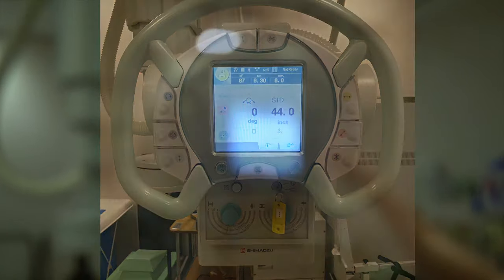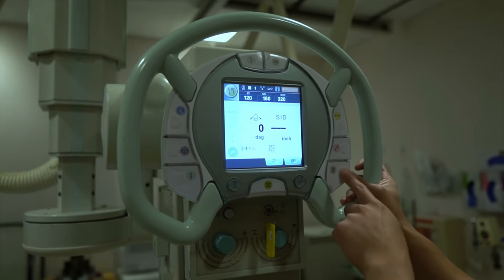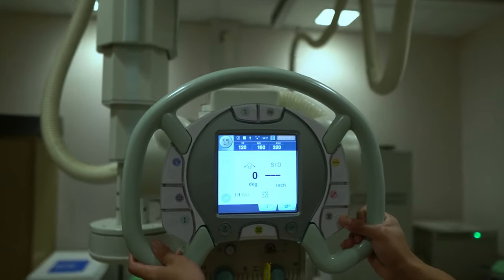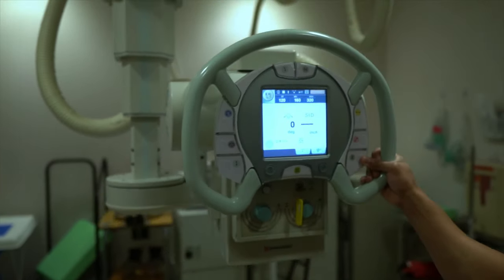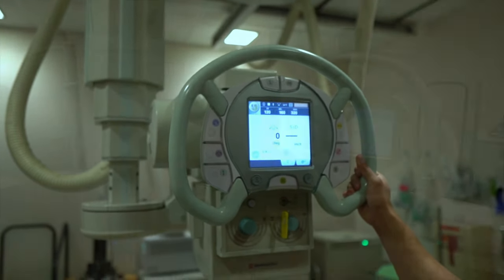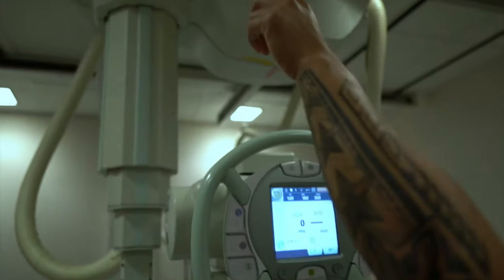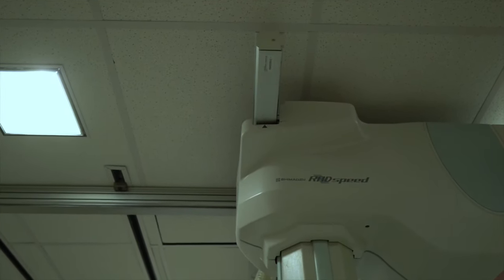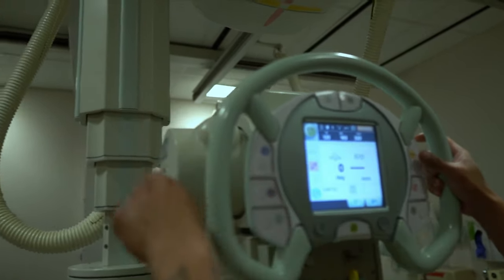These next two buttons are your detent and all locks buttons. First press the detent button and make sure it is not activated, then press the all locks button to allow you to move your tube freely without running into or over a detent. You want to make sure the detent is not activated because failing to do so can cause damage to a magnet. You'll find detents at mid-sagittal plane to the wall bucky, at 40 or 45 and 72 inch SID to the wall bucky, and at mid-sagittal plane to the table bucky. They are normally marked on the railings. You'll know when you're detented by a light indication, physically feeling the tube lock into place — which can be subtle or apparent — or hearing an audible sound as you're approaching one.